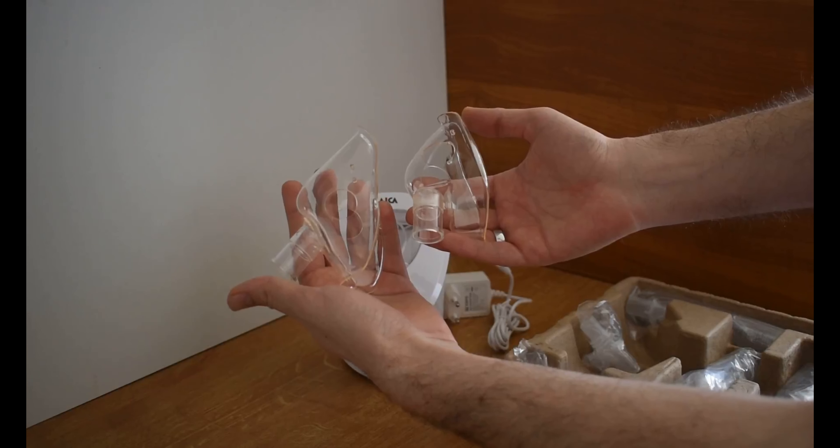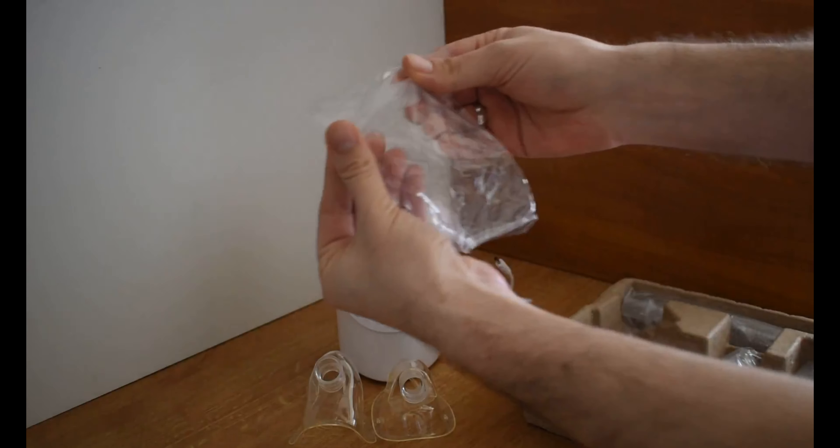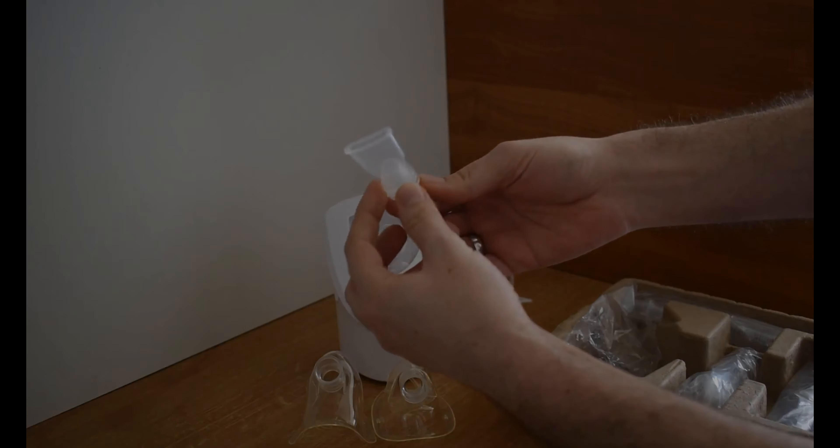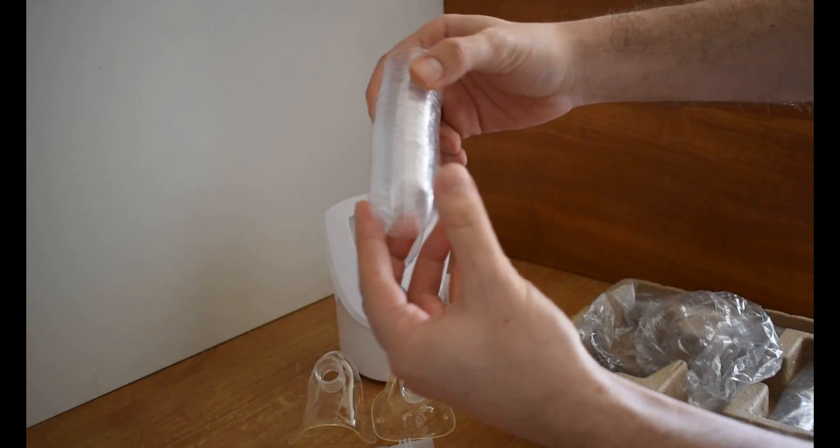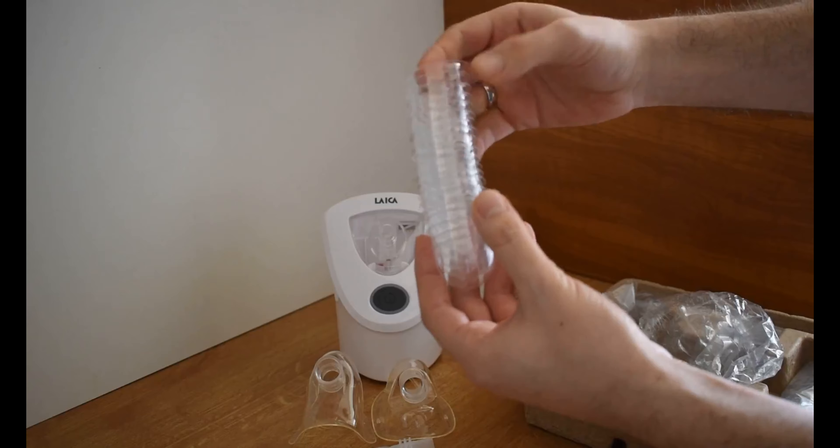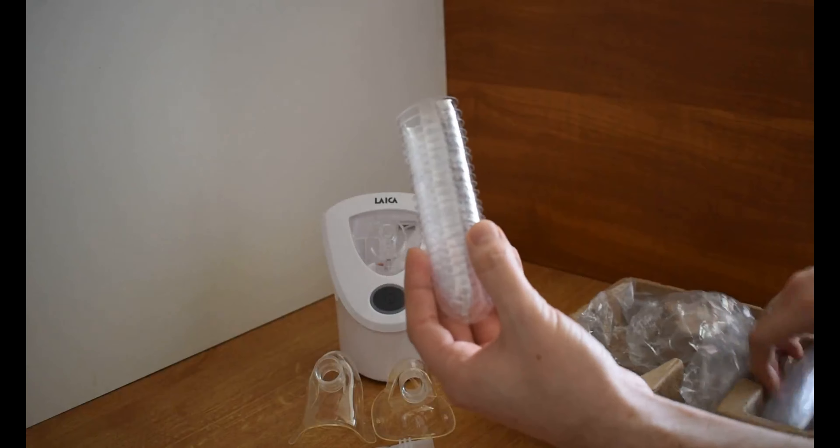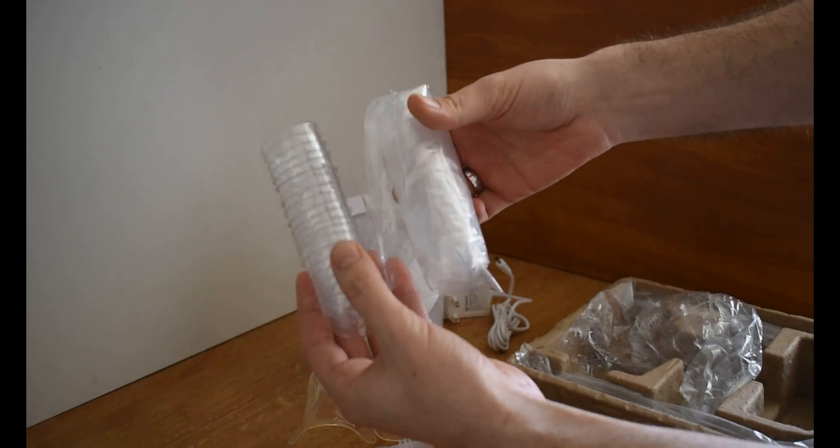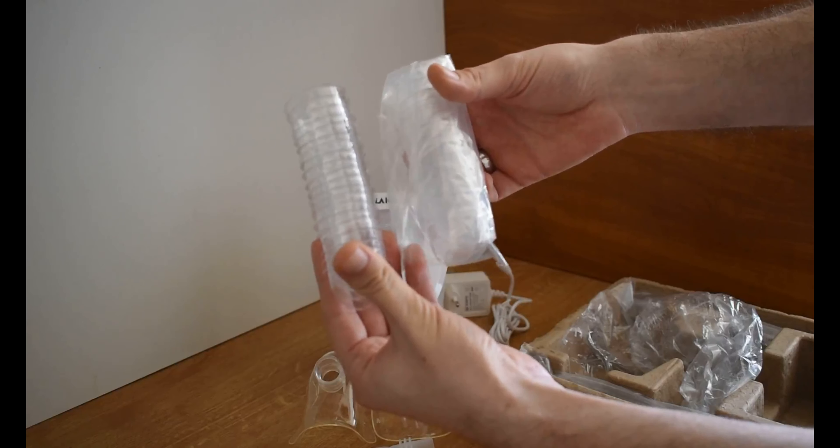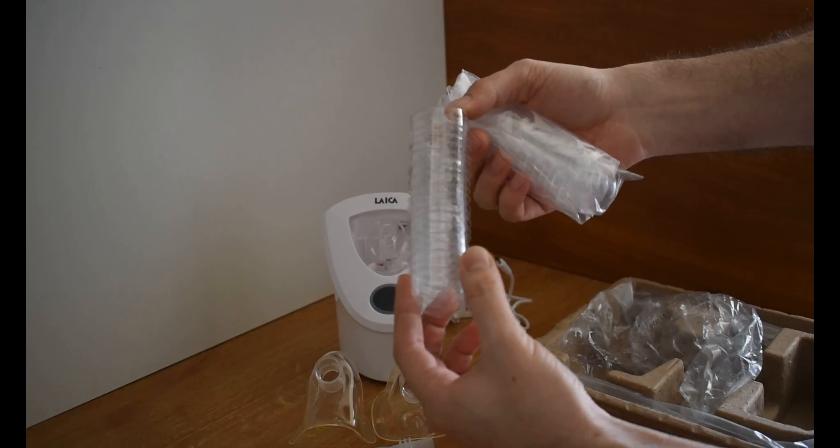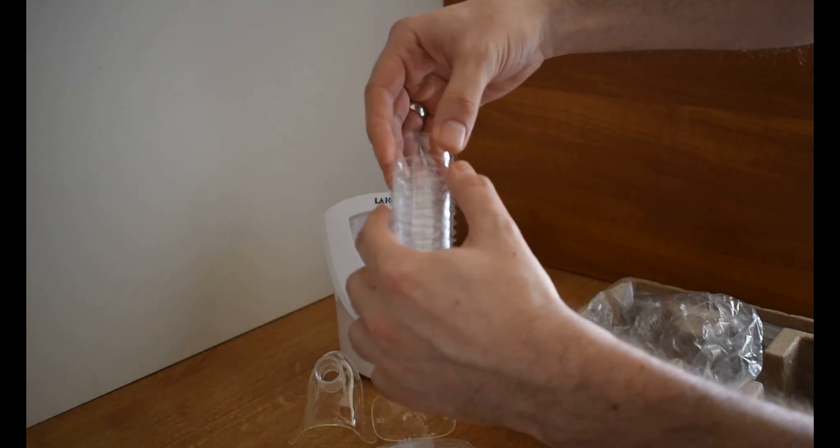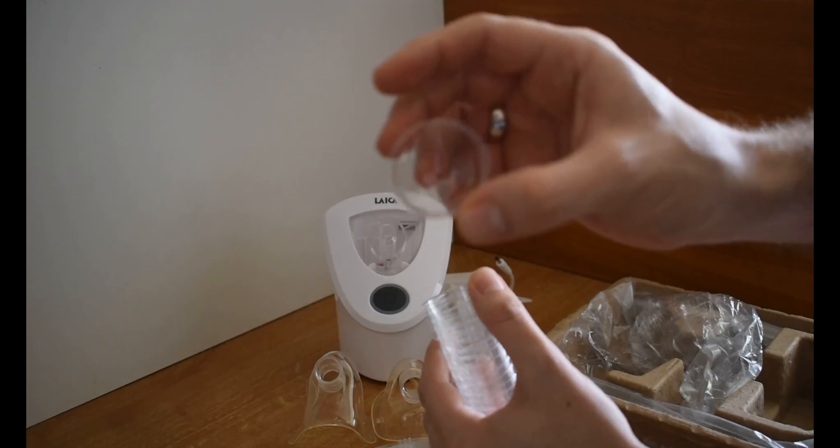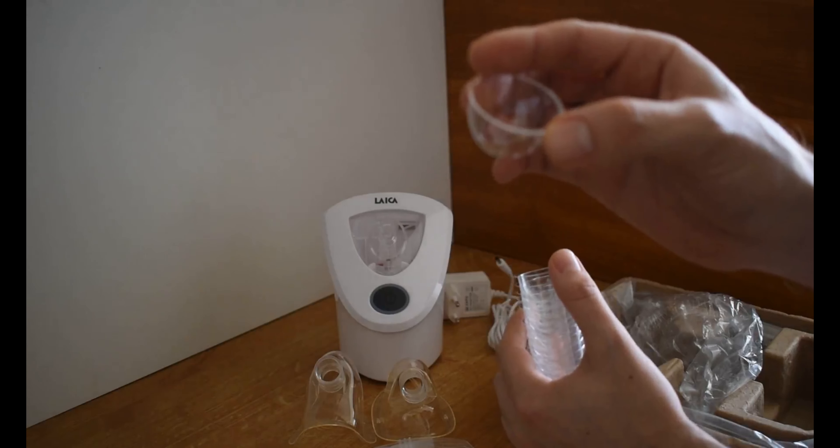Of course it depends, some kids don't like to have masks in such way for inhalators. This is basically the adapter attachment. These are the nebulizer caps, so really soft plastic, small cups which obviously we have two packs of which is great. These are only one time use and they have indication to what level we can fill those while they are placed inside of the machine itself. Here you can see they're really tiny soft plastic. Make sure you don't use them more than once, that's very important.